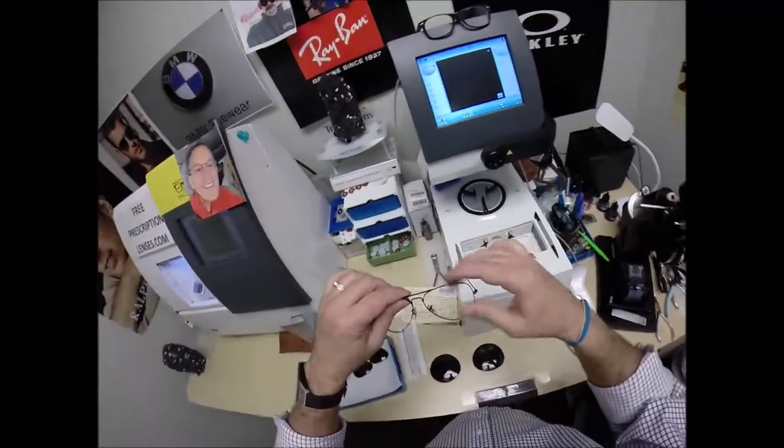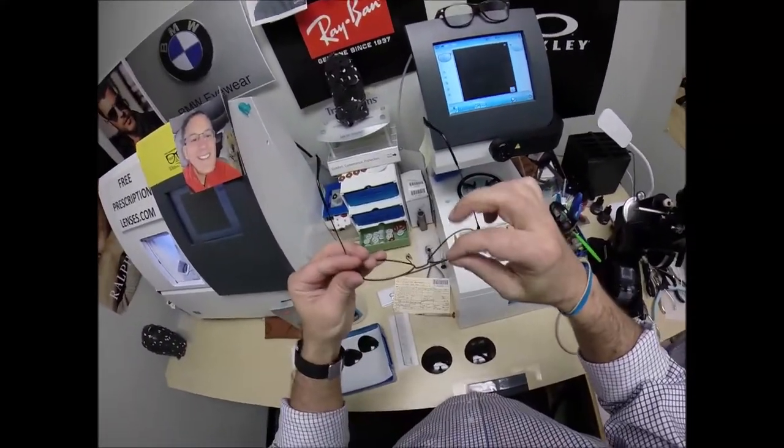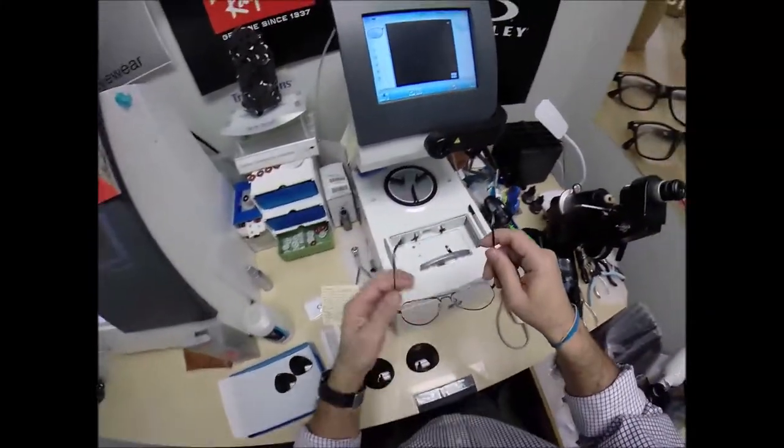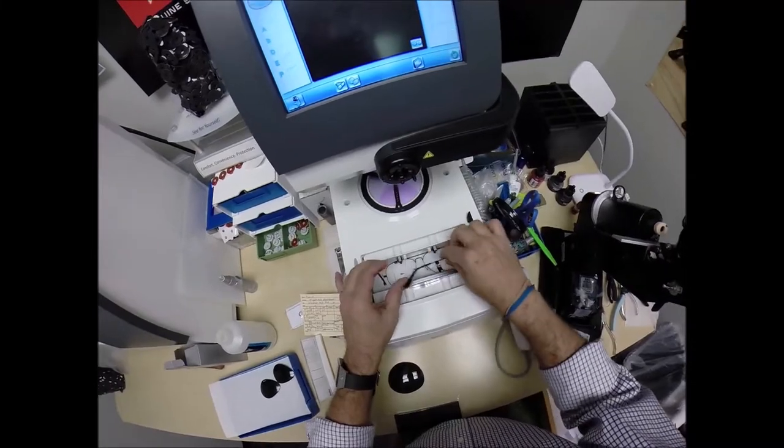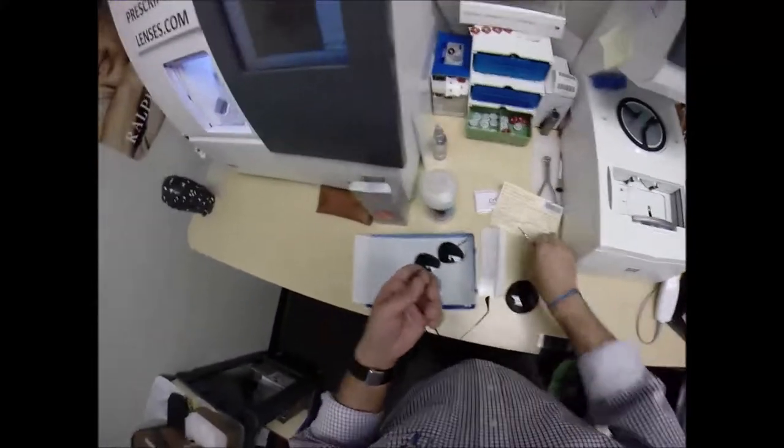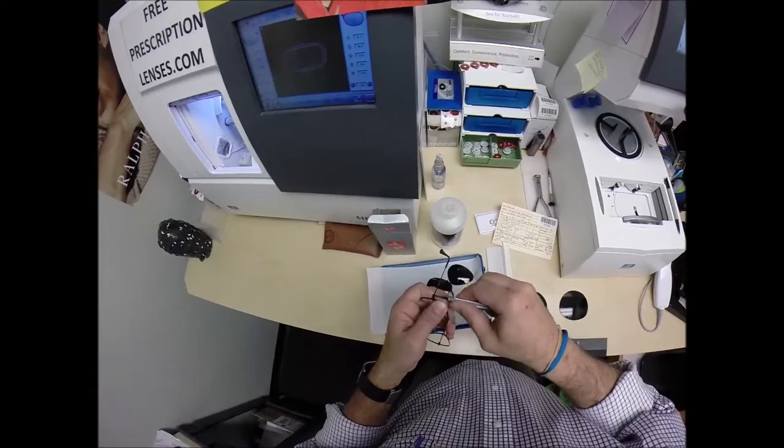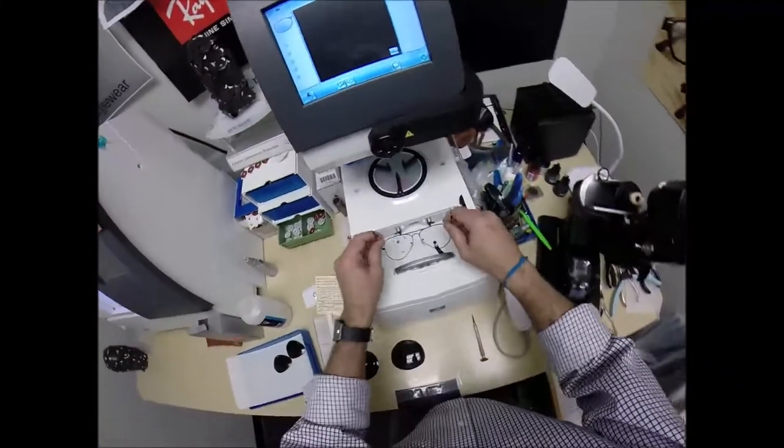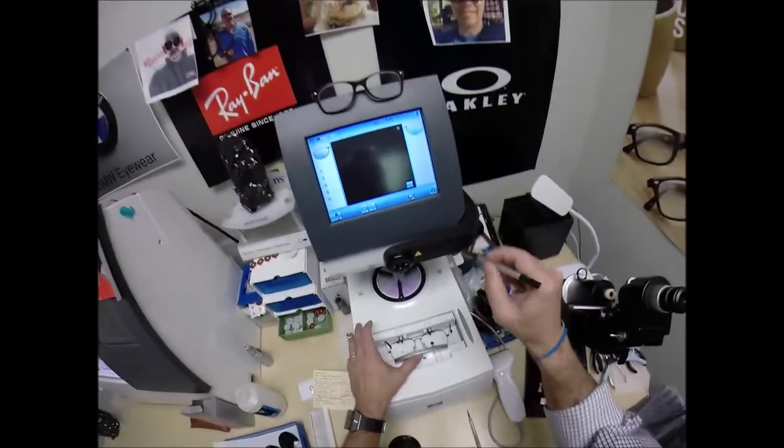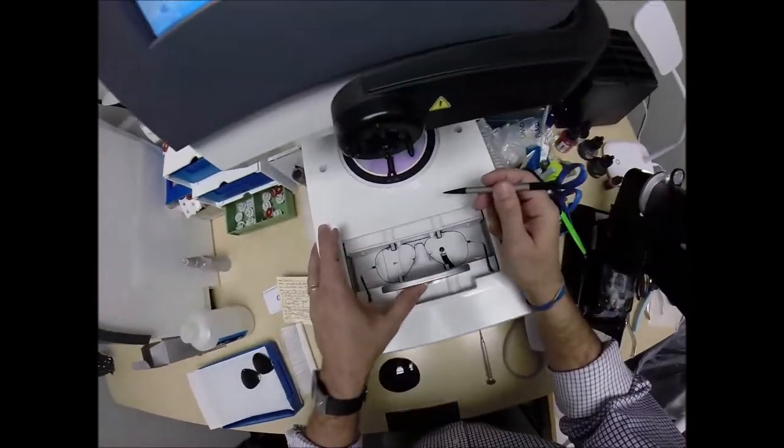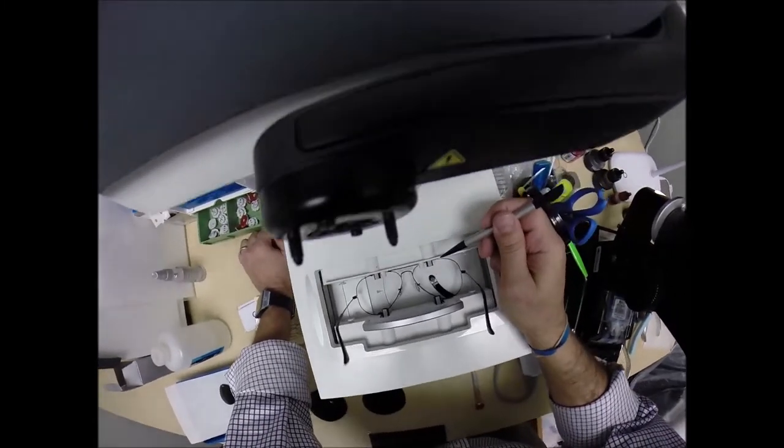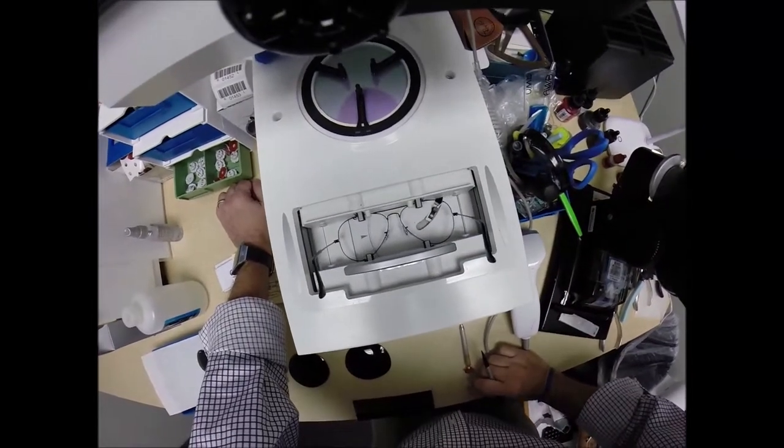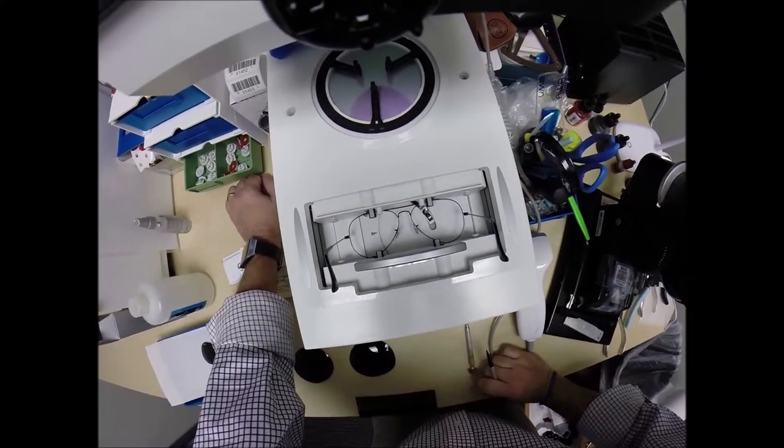The issue why I say this frame is problematic, it is so skinny, sometimes the tracer doesn't even realize there's a frame in there. So, we will see. I'm going to put this in here, and I hate these things flopping around, so I'm going to tighten that up a little bit more. Put that on there. Hit start. Let's see if it finds it. A little stylus is going to come up. Hey, how about that? It did find it. It's going around and tracing the inside bevel of the right side of the frame before doing the same thing on the left.